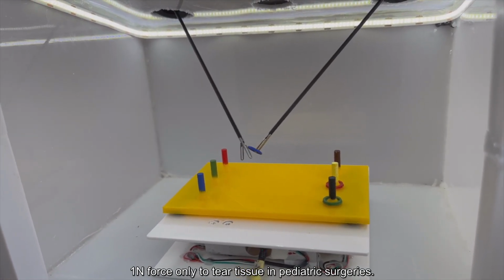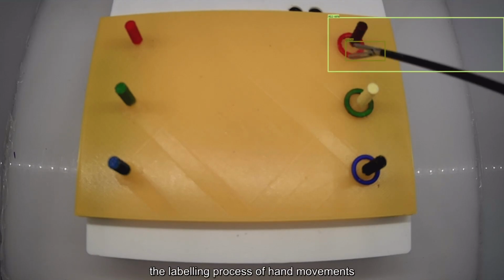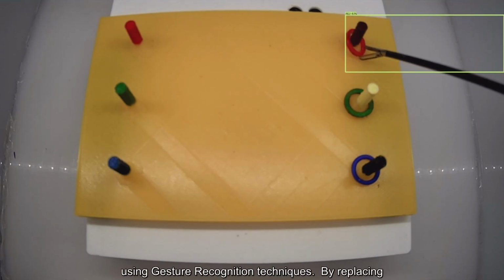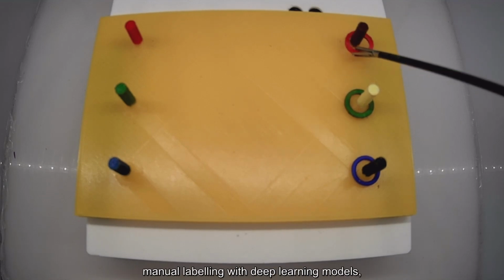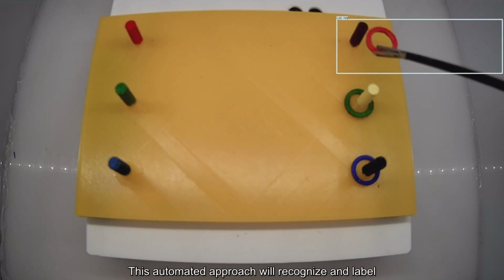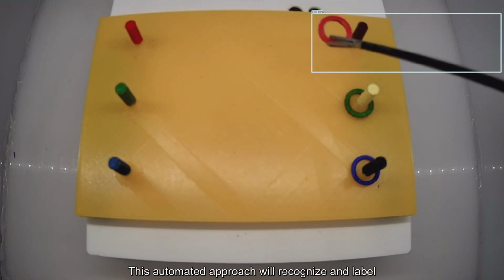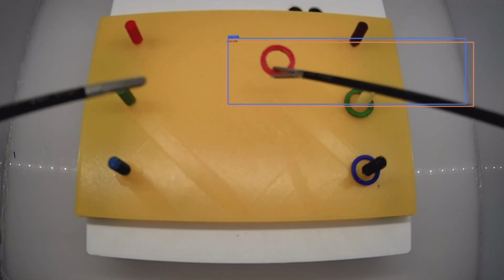tissue in pediatric surgeries. We then analyze the recorded trial to automate the labeling process of hand movements using gesture recognition techniques. By replacing manual labeling with deep learning models, our system has become precise and efficient. This automated approach will recognize and label surgical gestures in real time without human intervention.